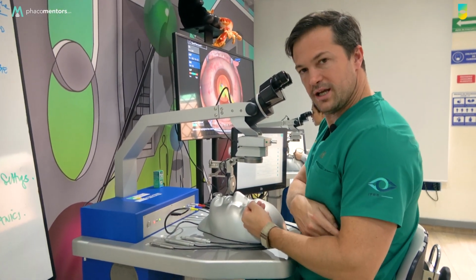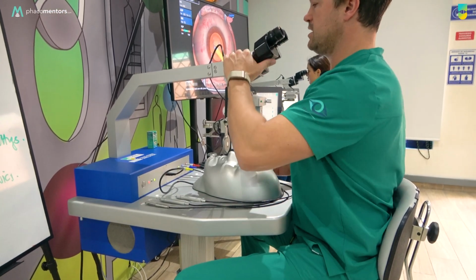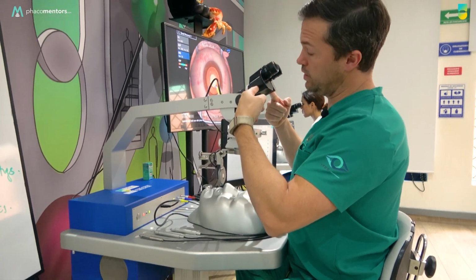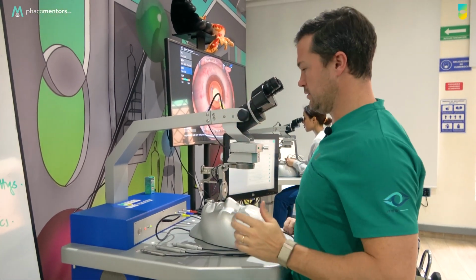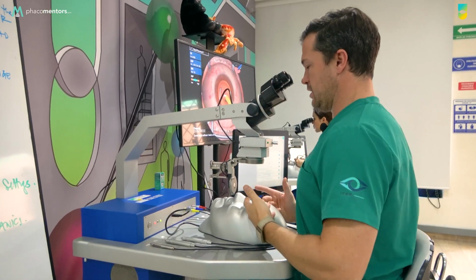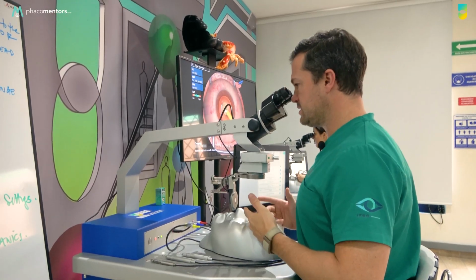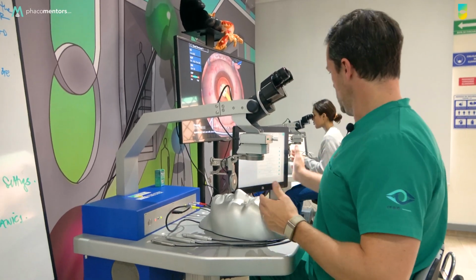Okay, then the second thing you need to be aware of is where your hands are going to be, and you need to try as much as possible to have 90 degrees in your hands. Remember, I told you always use this angle. So what I'm going to do is I'm going to put it a little bit high, and then here I'm going to have the correct hand position. Okay, so the ergonomics are perfect.